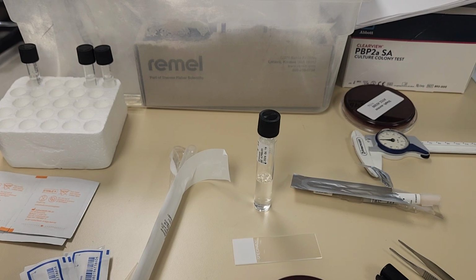Okay, the next susceptibility test that we're going to do is called the beta-lactamase test, and we're going to use what's called the cefinase disc. This is another disc that has cefinase. I'm sorry, let me back up a minute. Sorry. Stop this now.